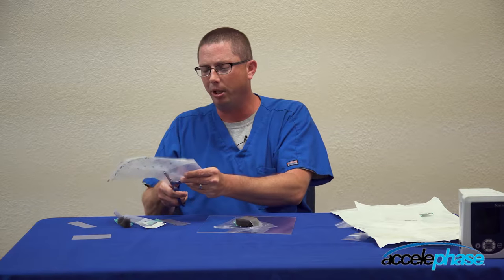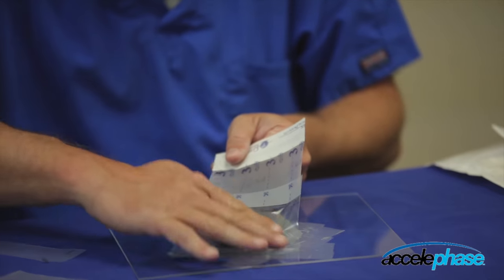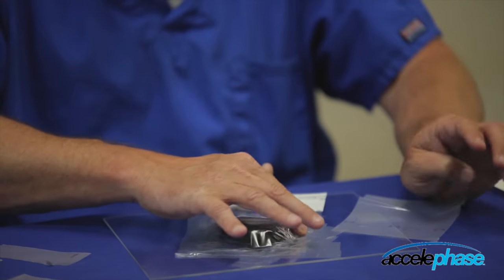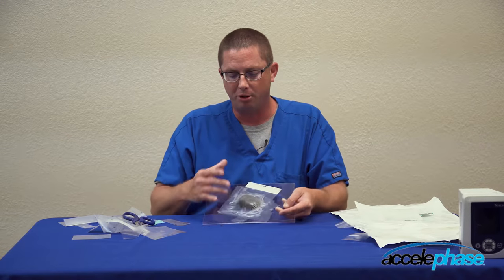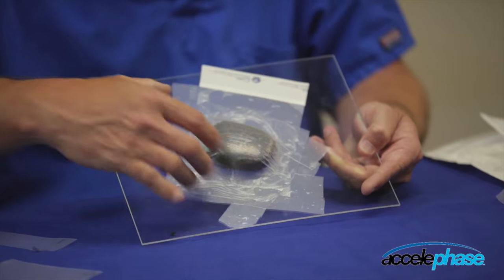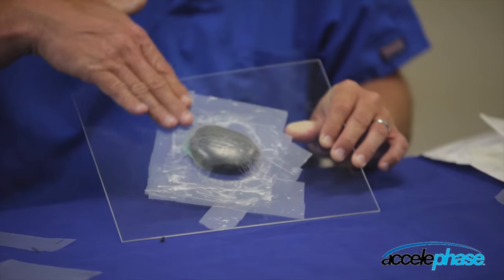I'll cut about a four-inch piece for this wound simulation. Remove number one, adhere it to the wound — I'm not pressing on the foam. Remove number two, walk that over, then remove number three. Wrinkles will be pulled out during negative pressure — it doesn't have to be aesthetically pleasing for negative pressure to be functioning correctly. Do not push on the foam during the drape application. Ensure the entire wound is covered with drape. Then walk your finger around the outside of the drape to ensure good adherence to the peri-wound area.